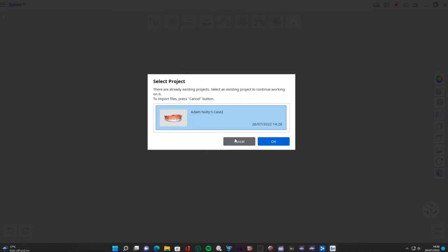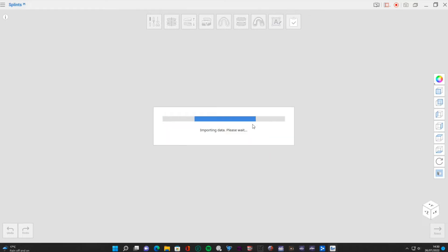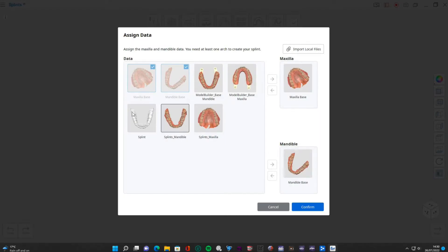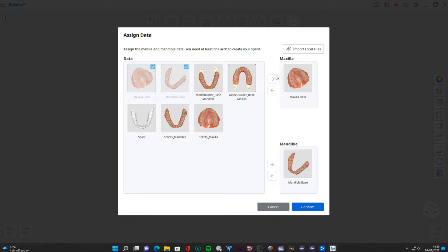With the manual function, why would you use that? Realistically it's for customizing a little bit more - more coverage, a little bit more thickness, however you want to do it. When you've already created a case like this it's going to say 'select project' - I'm going to click cancel because I want it to import the data. It's still got everything in the file section that we generated in the last one, including the splint we generated with the AI.